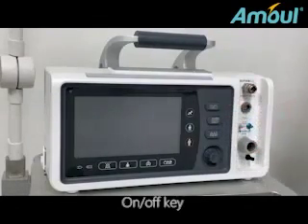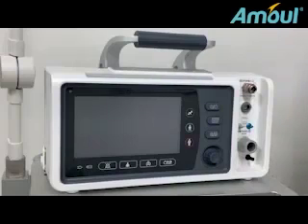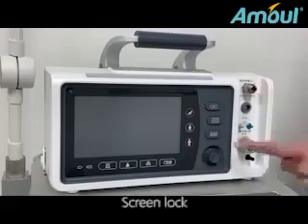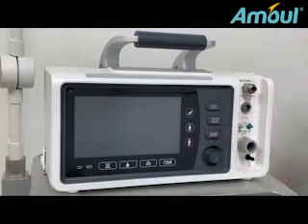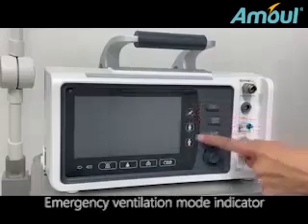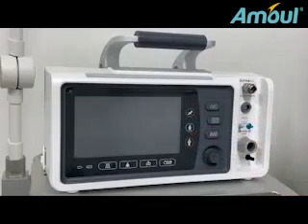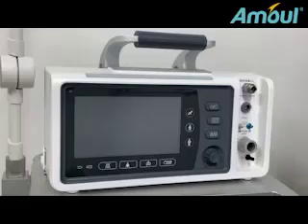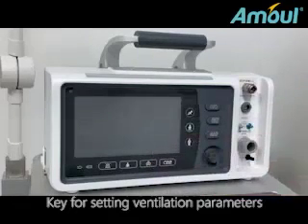On/off key. Main menu. Screen lock. Emergency ventilation mode indicator. CPR. Key for setting ventilation parameters.